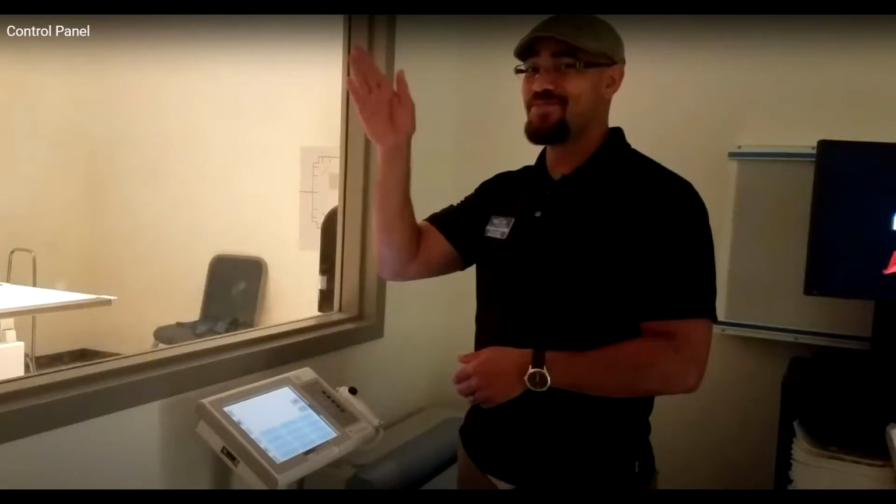Alright everyone, today we're going to be talking about the control panel, so please just act like you know nothing about this and let me teach it to you.